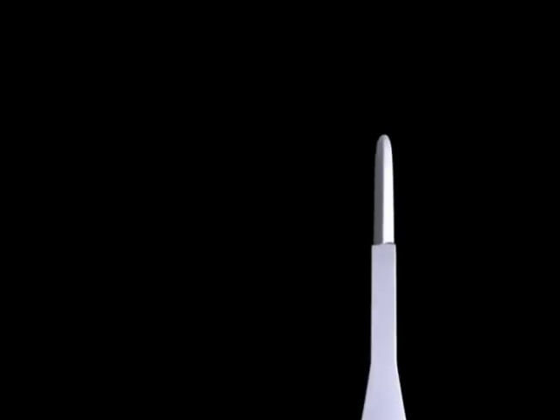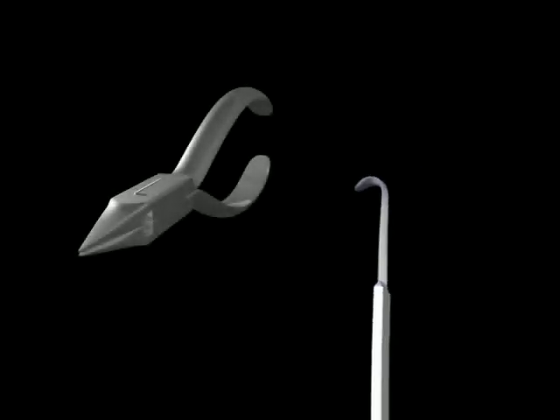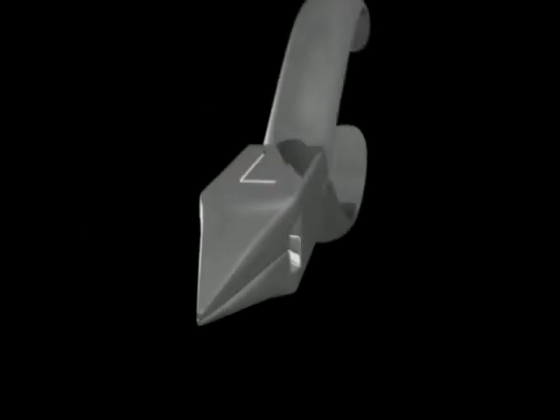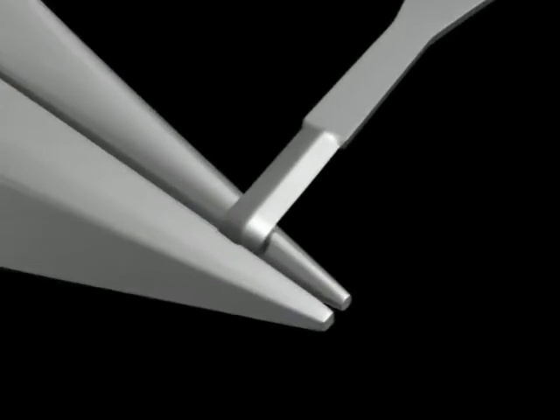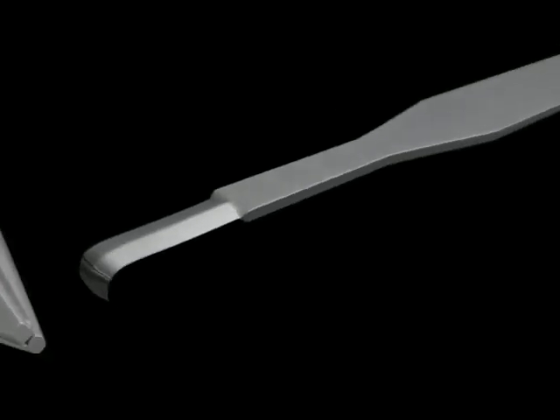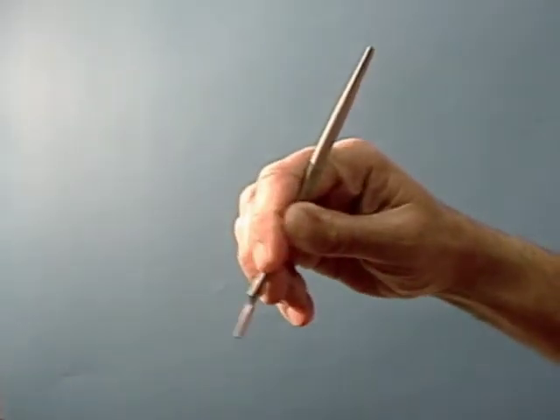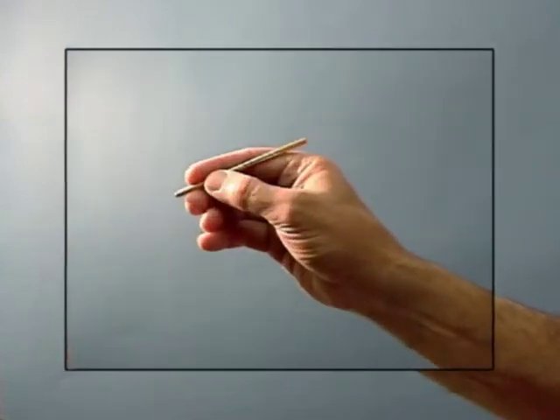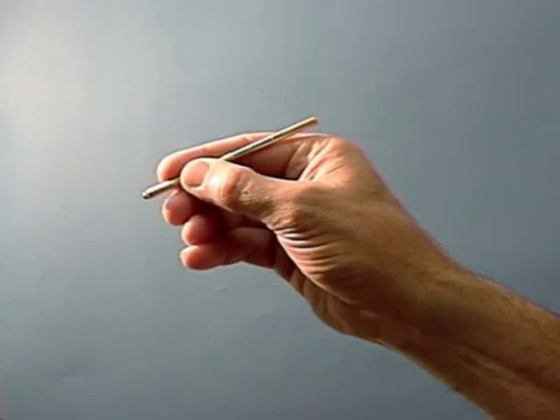Because nothing in the body is straight, the N6900 blade can be modified using orthodontic bending pliers to create new shapes and contours. Here you can see the modification of the N6900 blade using the orthodontic bending pliers, creating some of the typical contours we might expect to use with our surgical procedures. Previous flat blade handles did not allow for the use of small muscle rotation and encouraged the use of larger muscles with more inaccuracies and movement. Round handles use small muscle rotations and create more precise scalpel movement.